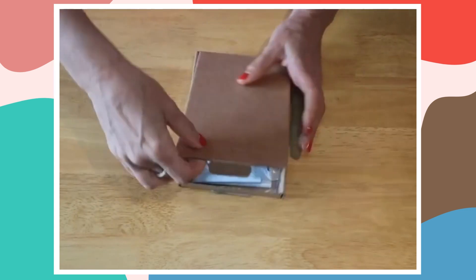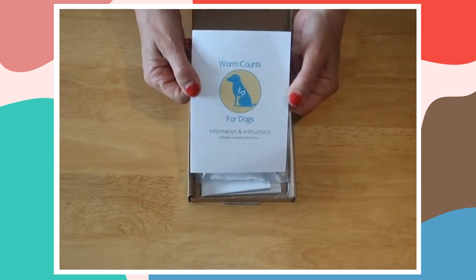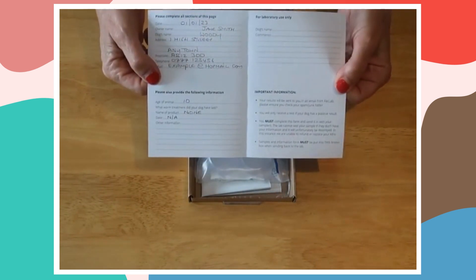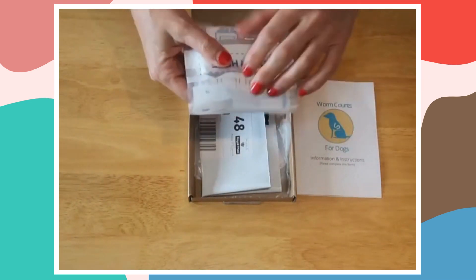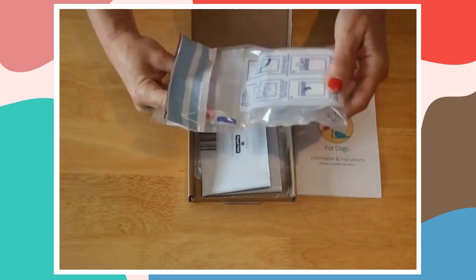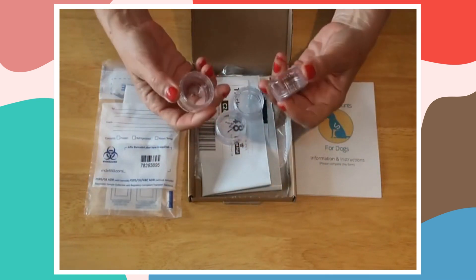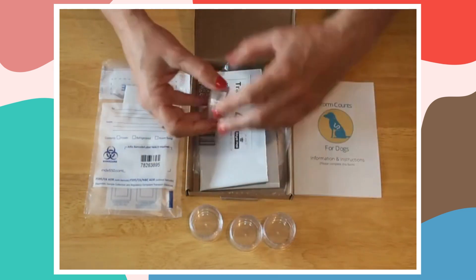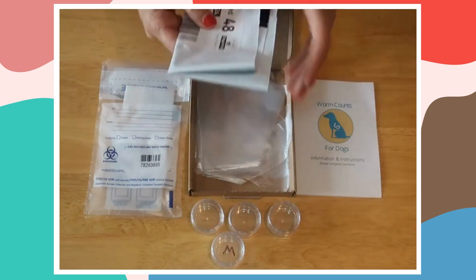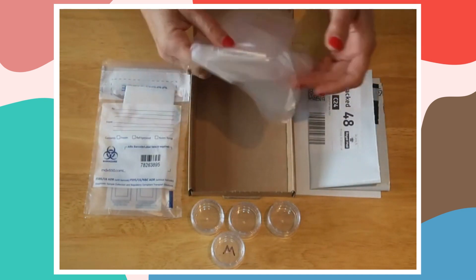In the kit you have your information and instruction leaflet, which you need to read — it will show you how to take the sample properly, and inside you're going to fill it in with your details. We have four pots in an envelope, which you will need to put your samples back into. There are four pots: three for lung worm and one for worm count, and the worm count pot will have a W on it. There's also a return envelope which you'll need to send back to the lab, and gloves for taking your samples.